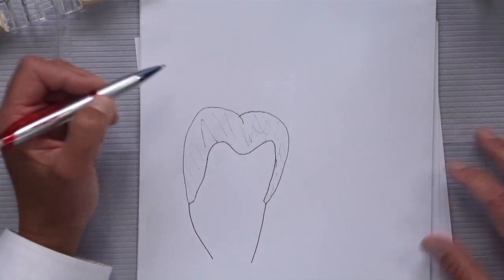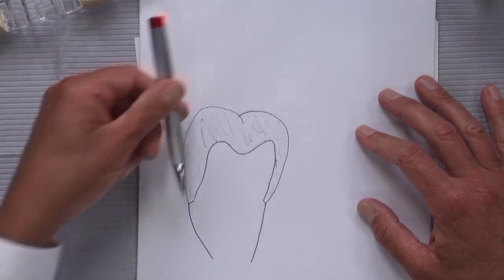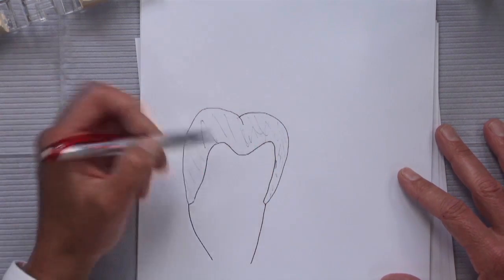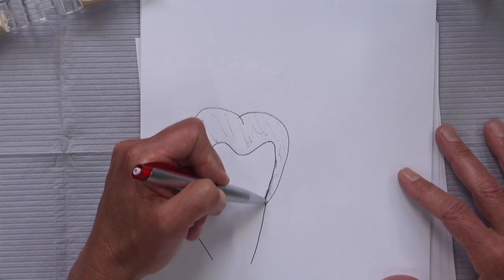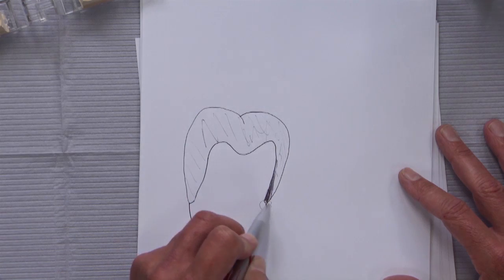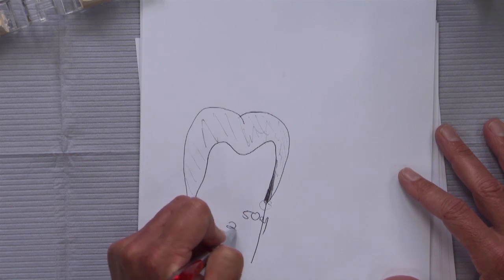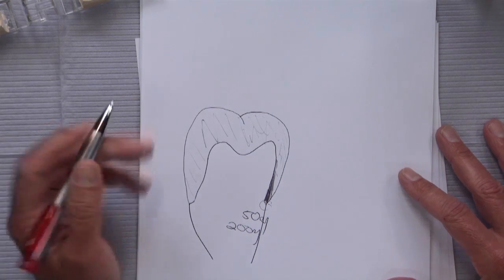With adjacent teeth present, the technician has to come into the inside of the crown and grind away at the Bruxer until it negates the undercut. The problem is that when you grind all of that away, you begin to open the margin. Instead of having a margin open say 50 microns, by the time you grind this away it might be open 200 microns, which becomes problematic even with resin cement.